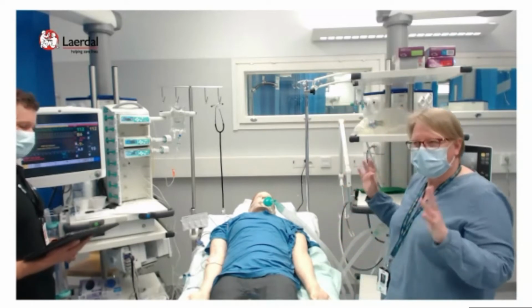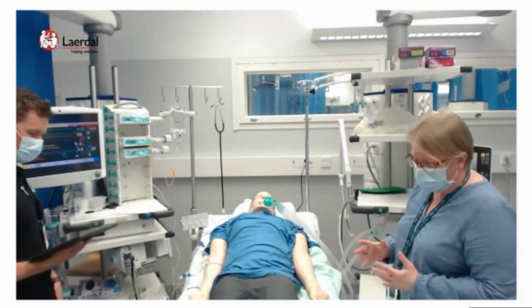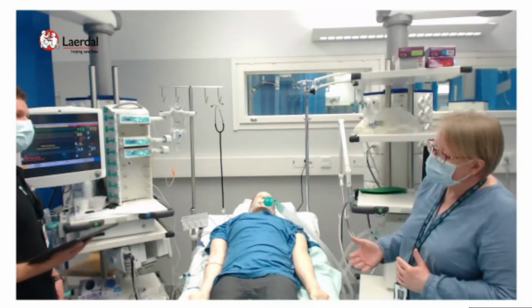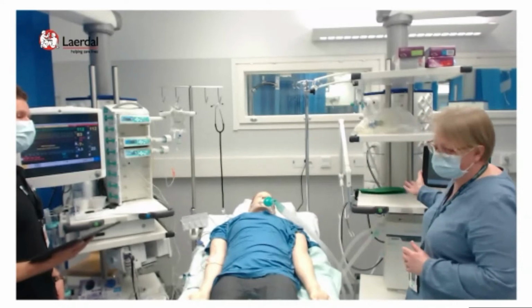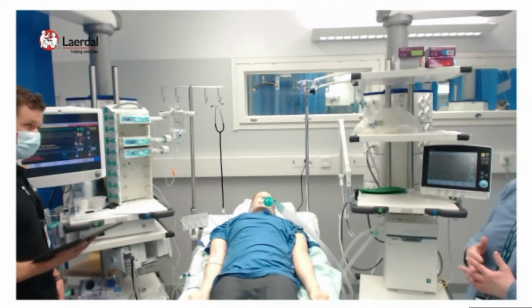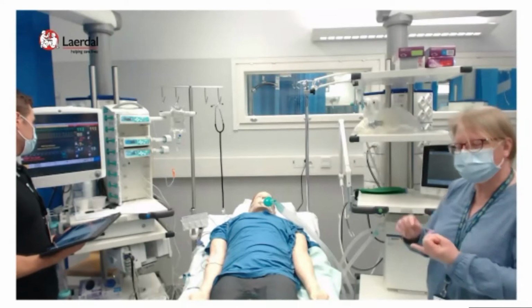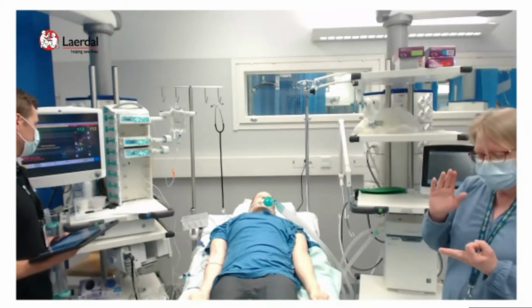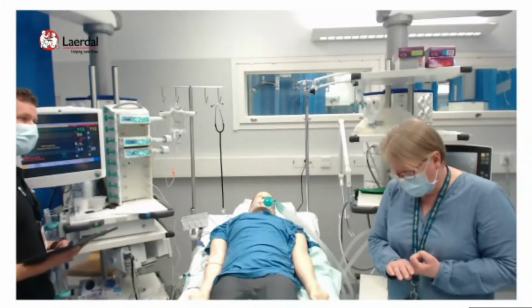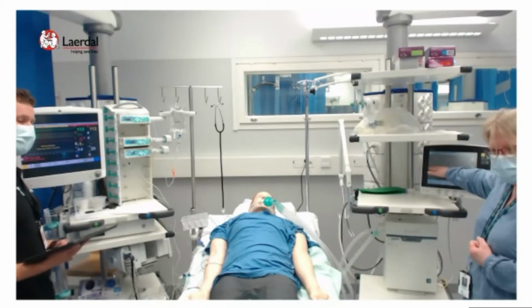And then the first thing to do after the sedation is okay would be to change the ventilator settings. So how would you do it? What would you do next? Would you change tidal volume? Would you change frequency? Would you change positive end-expiratory pressure, PEEP? And how much? And remember, we are on volume control.